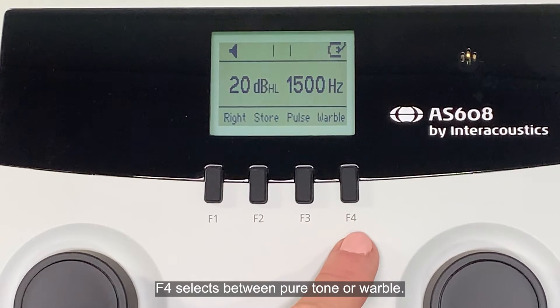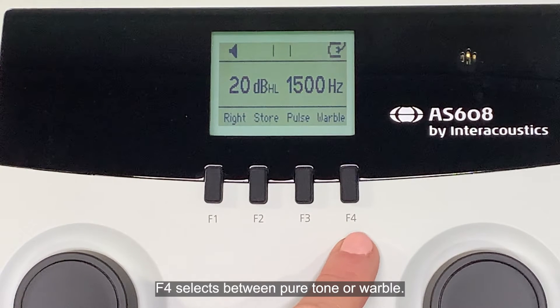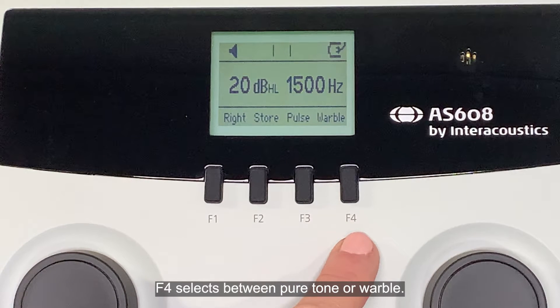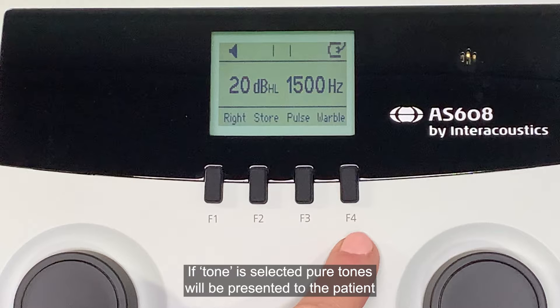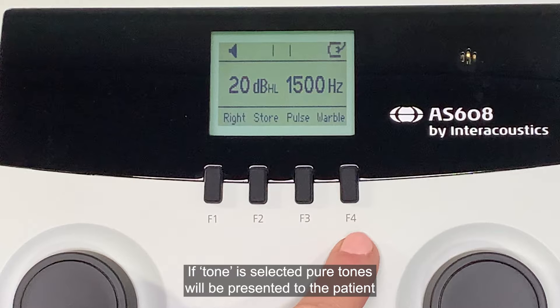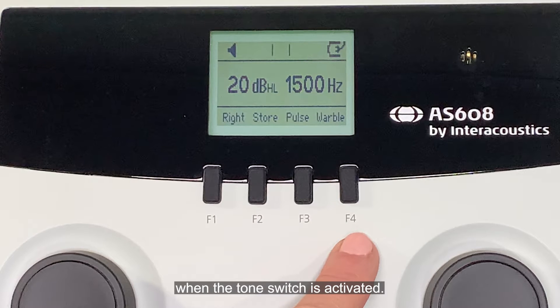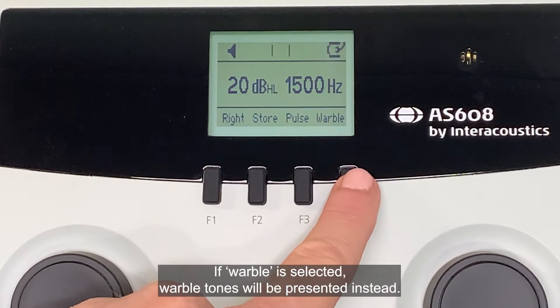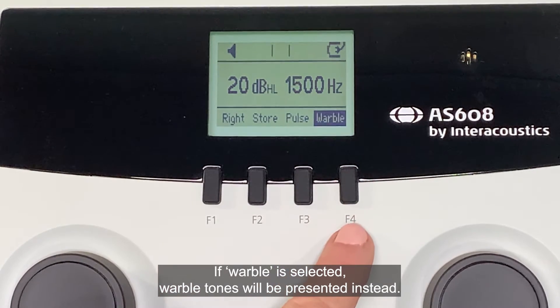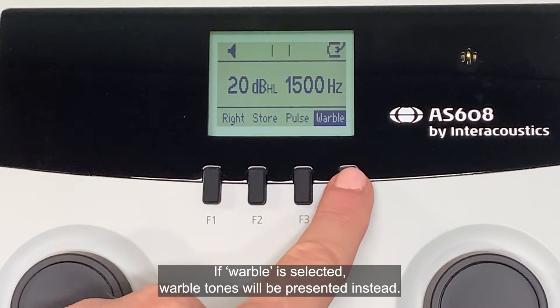F4 selects between pure tone or warble. If tone is selected, pure tones will be presented to the patient when the tone switch is activated. If warble is selected, warble tones will be presented instead.